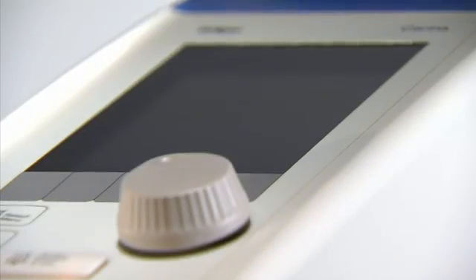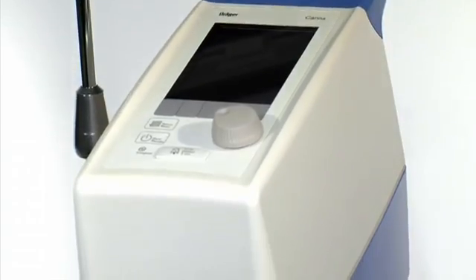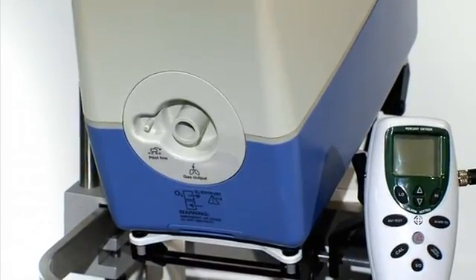Once all maintenance steps have been completed, Carina is ready for the next patient and can be assembled as described in the preparation chapter of the instructions for use.